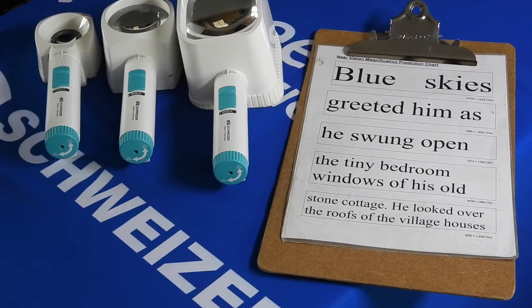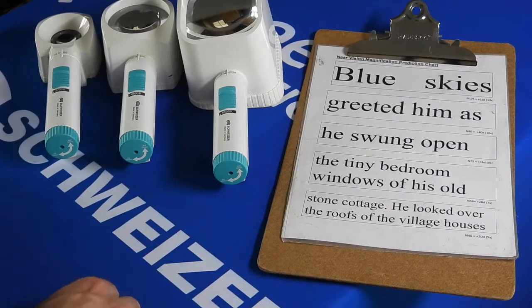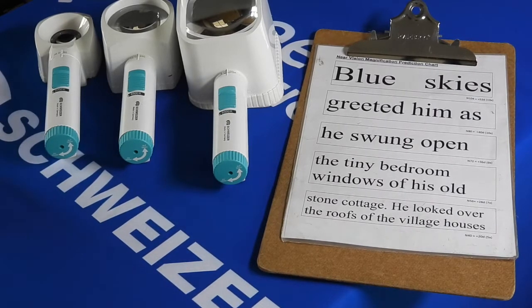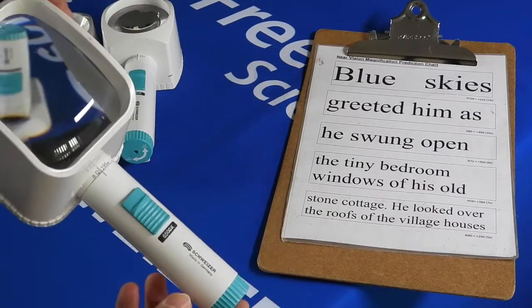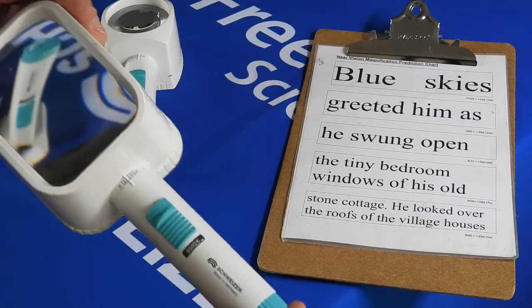Hello and welcome to another Optelec Enhanced Vision product demonstration. This is episode number two in our series of how-to videos. Today we are concentrating on our Schweizer range of stand magnifiers, the Oculux range.